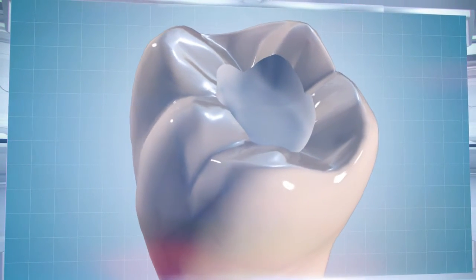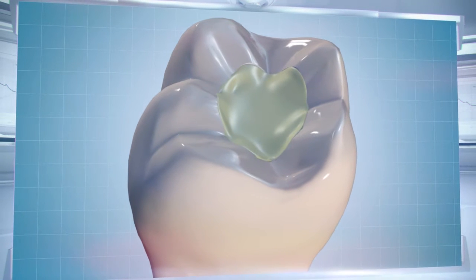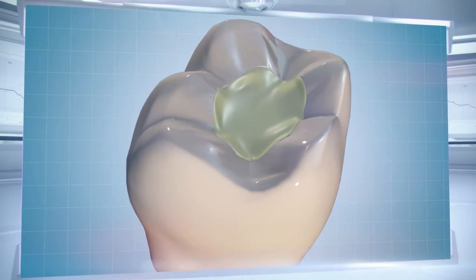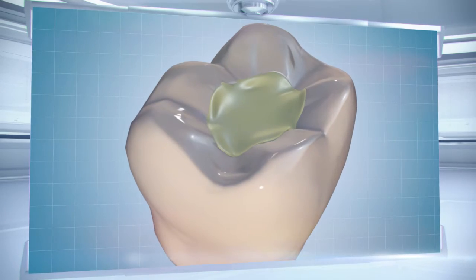In practice, dentists remove cavities manually, and their movements can only be so precise, which makes operations quite lengthy and painful.